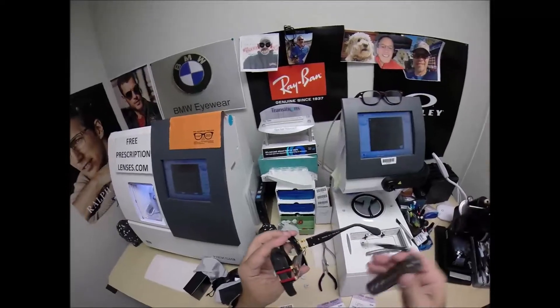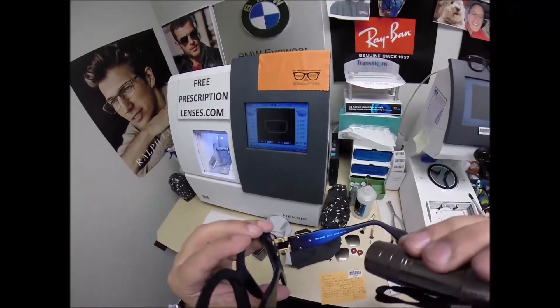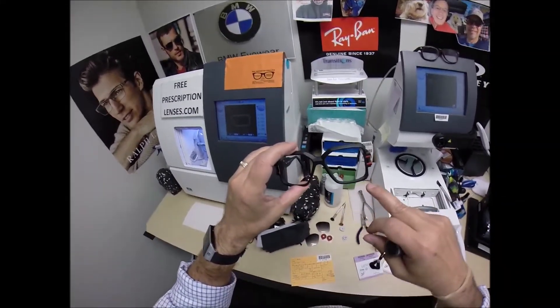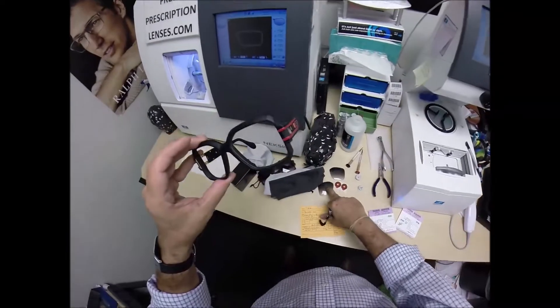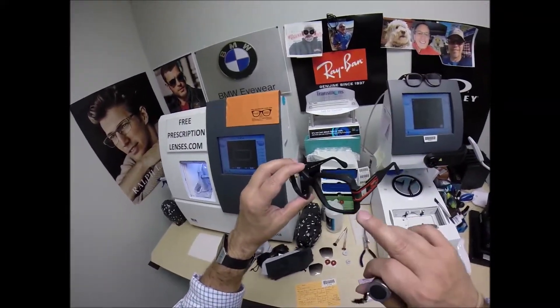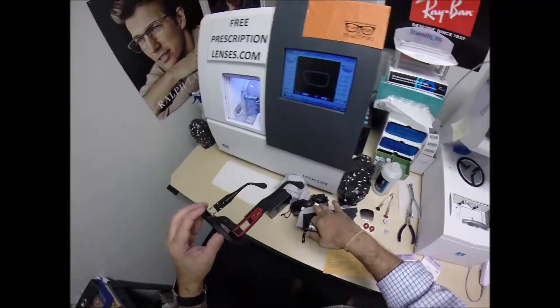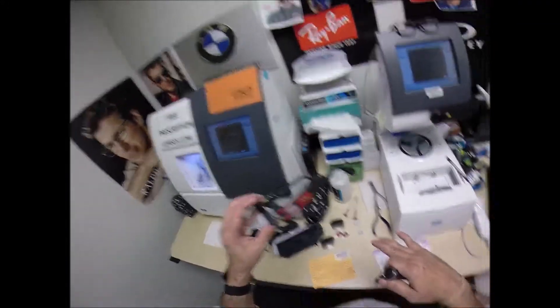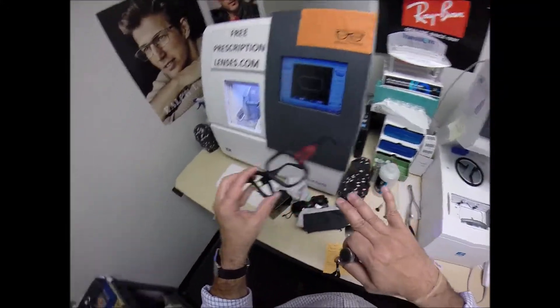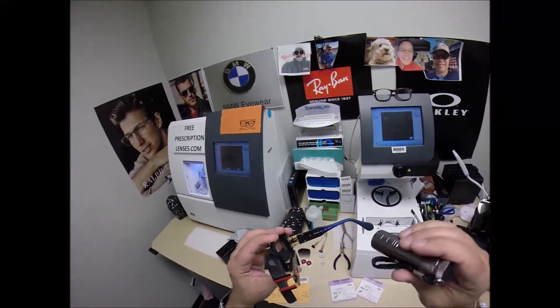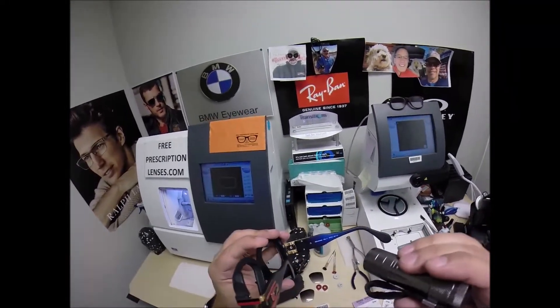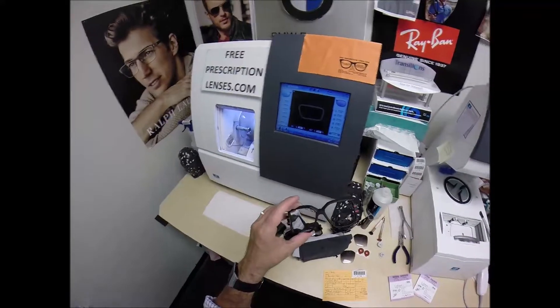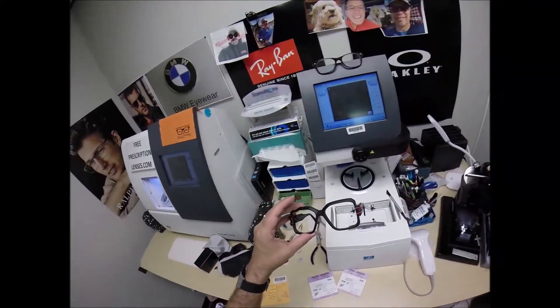These are the legends. Again, this is the model number 623, color 302. The 623s come with clear lenses in them, but he wants to wear these original ones when he wears his contacts. So I said go with one of the sunglass frames. Even though he's ordering polarized sunglass lenses, these will be prescription polarized that he can pop into this frame or this frame. The clear lenses I'm about to cut will fit into this frame and I'll show you in just a moment.